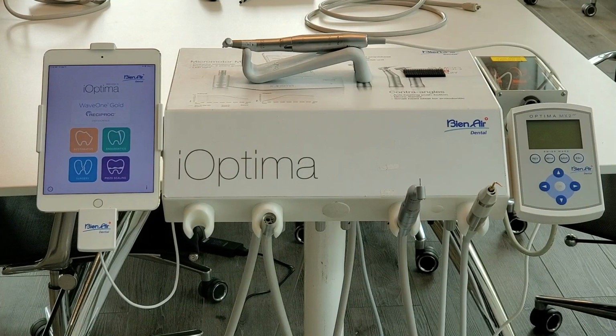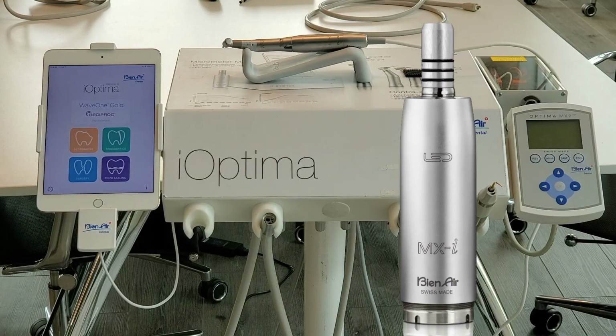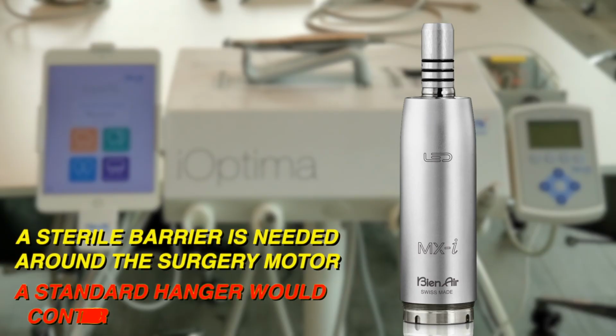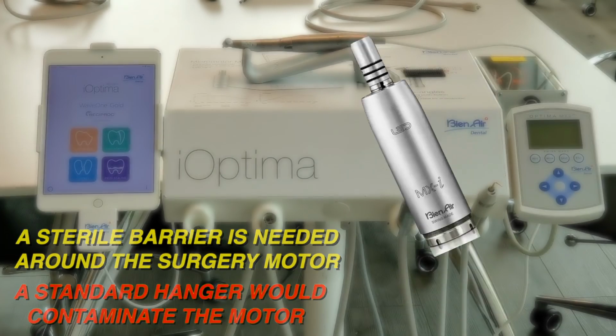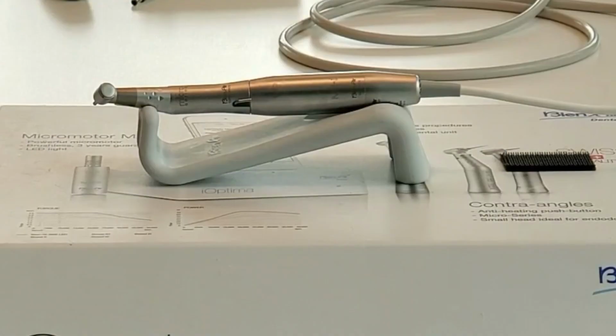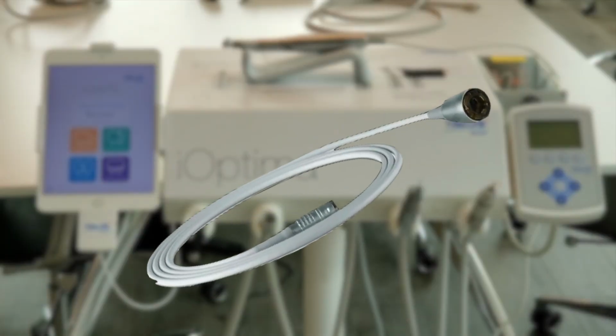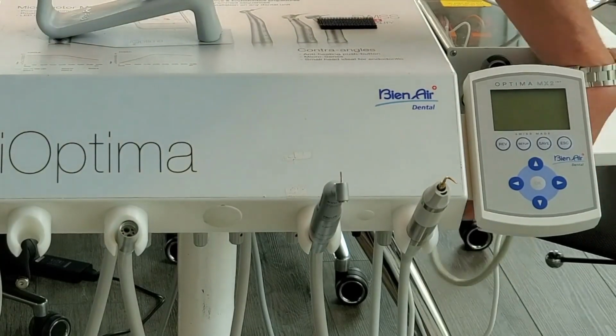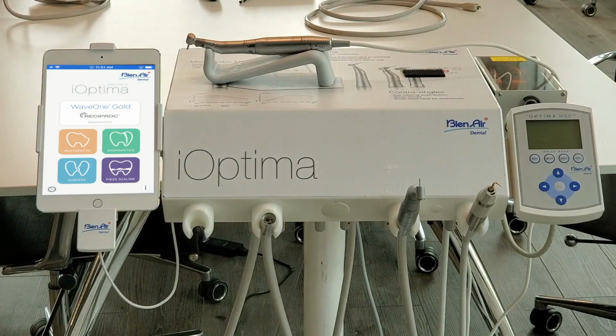The iOptima INT can run a surgical motor which can be integrated into a delivery unit. Because a sterile barrier is needed around the surgery motor, a standard hanger cannot be used. Doing so would contaminate the surgery motor. Therefore, every surgery upgrade kit comes with a sterilizable holder. A connector is installed on the delivery where the sterilized motor and cable can be attached on the day of surgery. To activate surgery mode, flip the dedicated surgery switch on the outside of the iOptima.